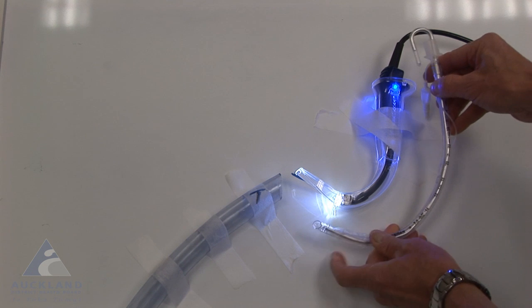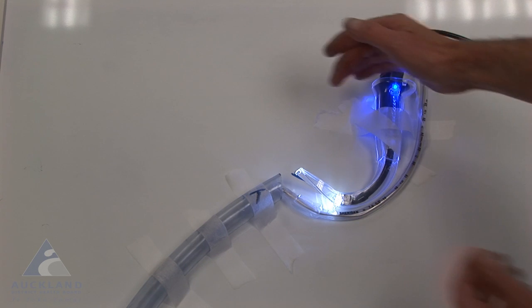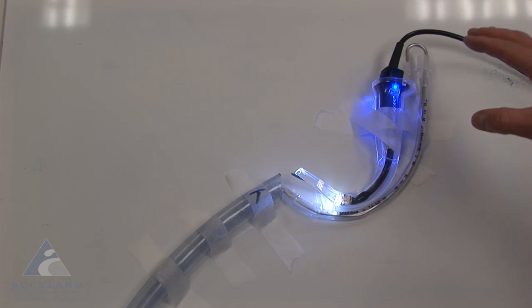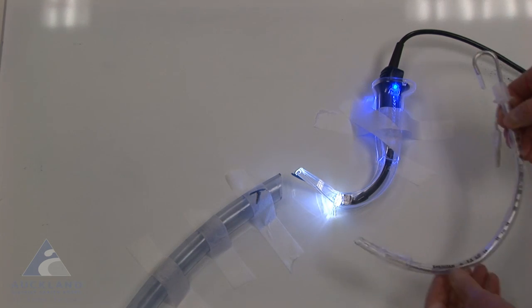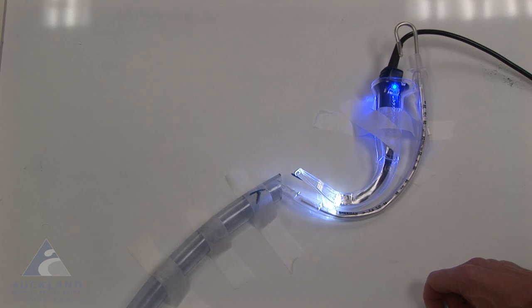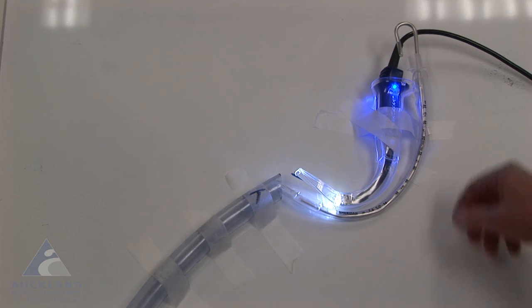like this, and it will impact the anterior tracheal wall in this position, and in this particular point here there will be so much friction with the tracheal mucosa that it's very difficult to see how this particular tube, even if the stylet was taken out, is going to advance in a posterior direction down here. In this particular mock-up, I have pulled the stylet back, and you can see that the tip is still angulated severely towards the anterior tracheal wall and is unlikely to be able to go posteriorly down through the trachea when you've got a very anterior larynx and you've got a view and you present the tube to the cords.